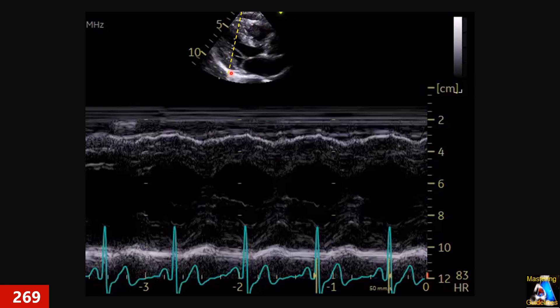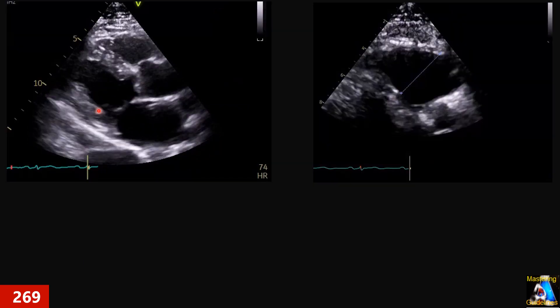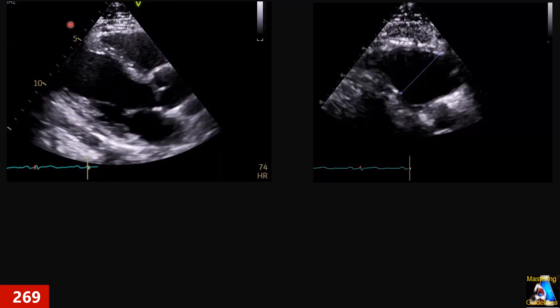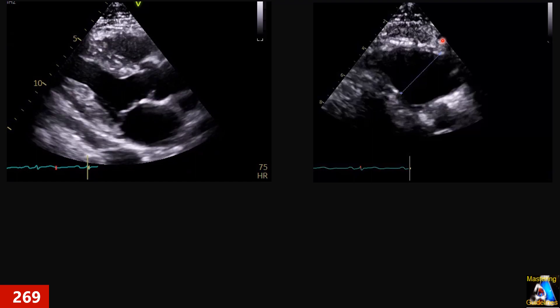Generally, what is the best way to get a correct M-mode for the left ventricle? As you can see, assuming the tech did this for the IVS and left ventricle — not for the mitral valve — as you can see, the cursor passes through a certain region. What is the rule in this case? Do you acquire such an image or not? If not, what should you do to fix it? Here we have another case where the tech acquired PLAX and took a zoom on this area — the RVOT or almost RVOT — and measured this way. Is that correct or not? What is the correct way?